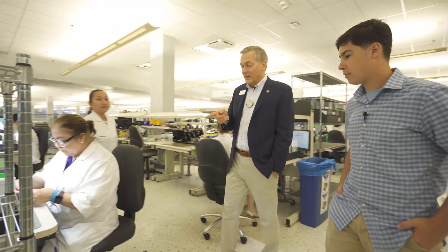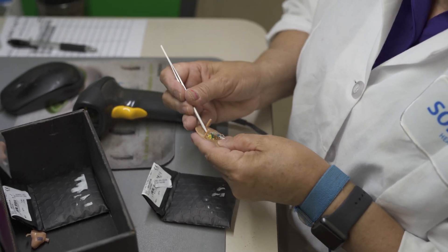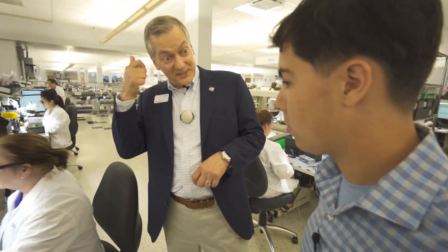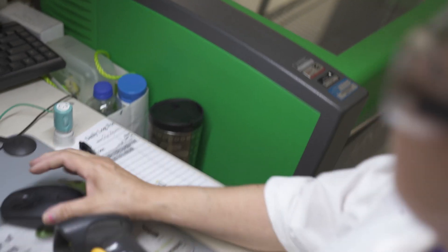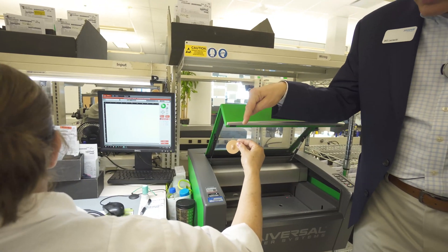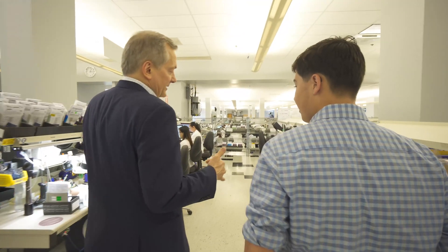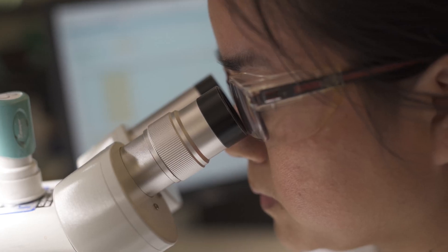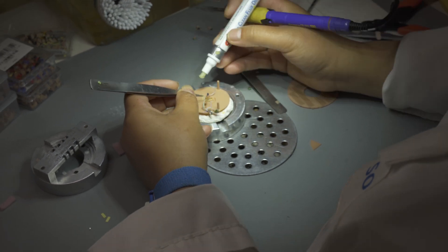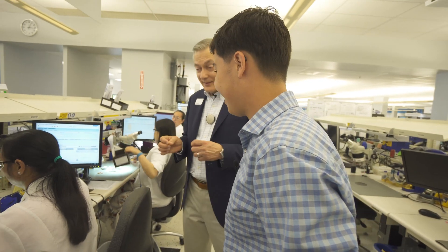The first step when finishing a custom hearing aid is the faceplate — what she just took out of that little protective envelope. All the electronics are on the back of it. We call it a faceplate because that's the part you'll see sticking out of your ear. That faceplate gets loaded into this laser, which perforates and cuts the exact shape, and stays in the surrounding material until it gets to the technician, who pops it out. The next step is wiring, where technicians solder components on or off depending on what that particular order needs. It requires hand-eye coordination and patience.